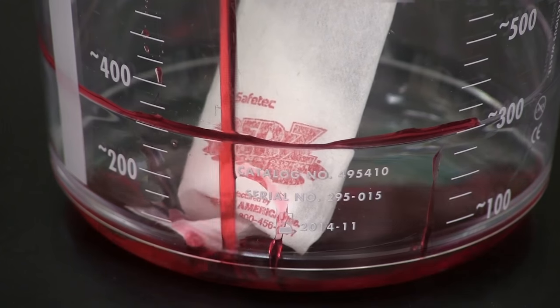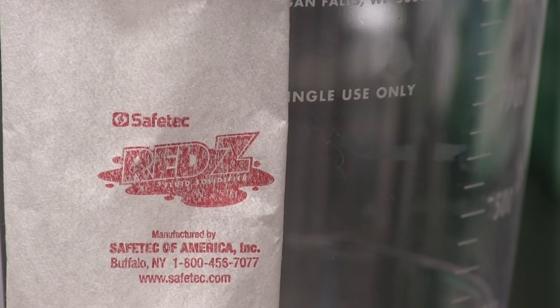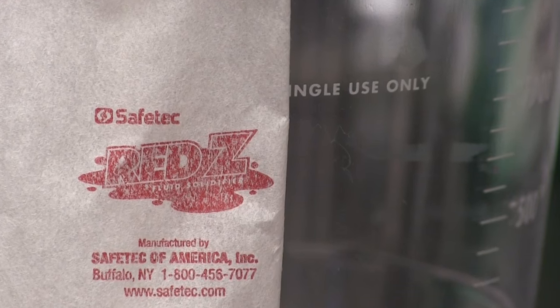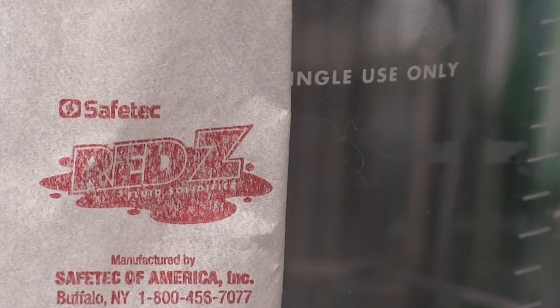Our third packaging option of fluid control solidifiers is our drop-in packs. They're made of non-woven material, allowing fluid to flow through. These may be used before or after fluid is collected.